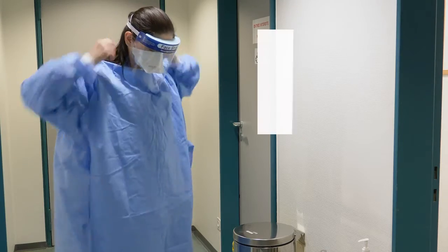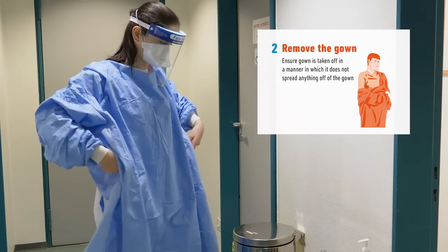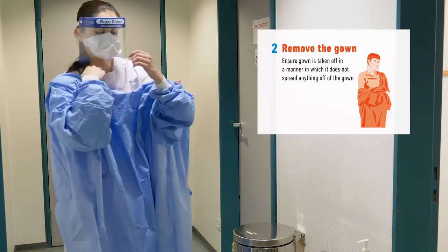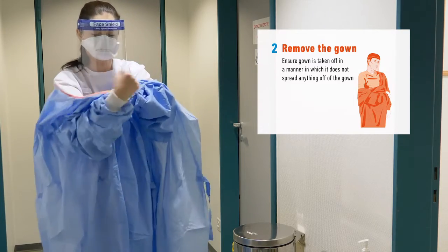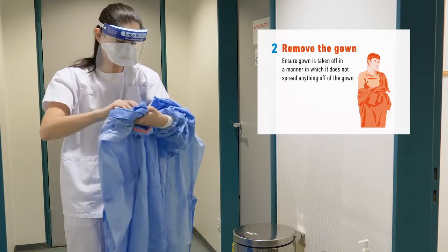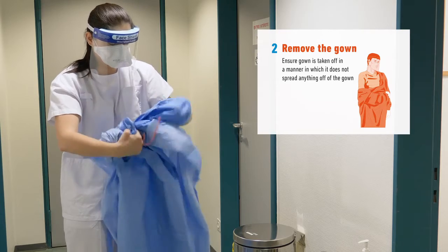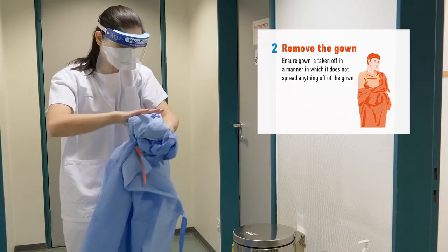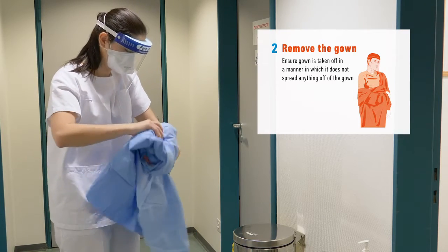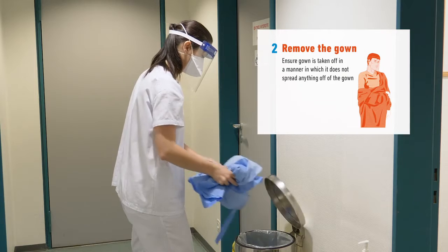Next, remove the gown by undoing the ties and ensure the gown is pulled away from the body, making sure there is no contamination of your clothes or the environment. Turn the gown inside out and dispose of it safely in the garbage or laundry hamper.